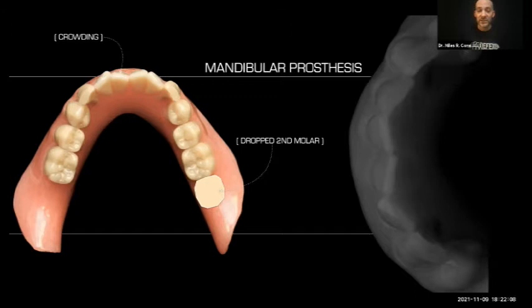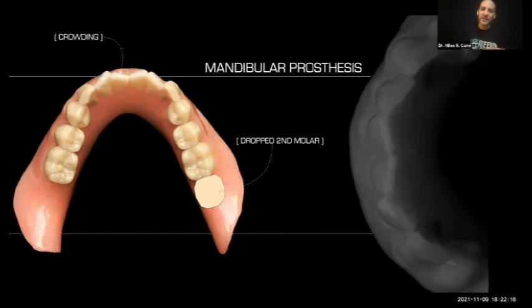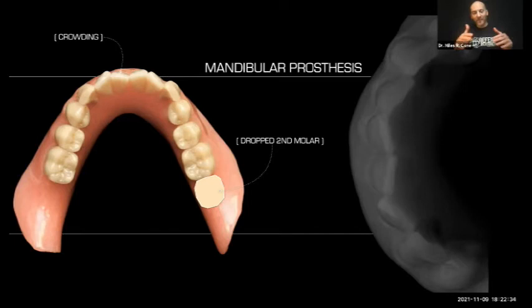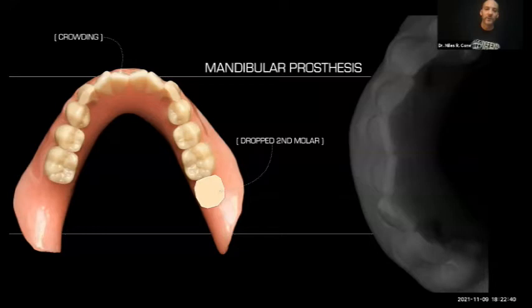Another thing I do: I will often drop a second molar. Just because you have them on the card of teeth doesn't mean you have to use them. For many of these patients — often older women — that's a lot of teeth. I'm either dropping a second molar or possibly a premolar and using the two molars. I don't want the second tooth riding up on the heel of the mandibular prosthesis, and most patients would never even be able to tell that the second molar was dropped.